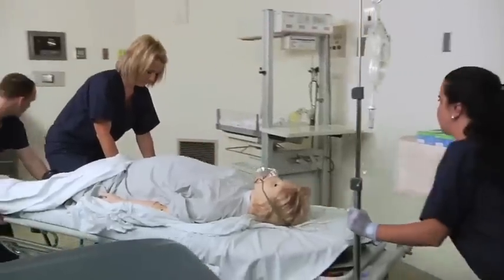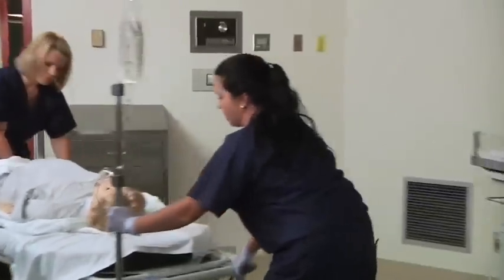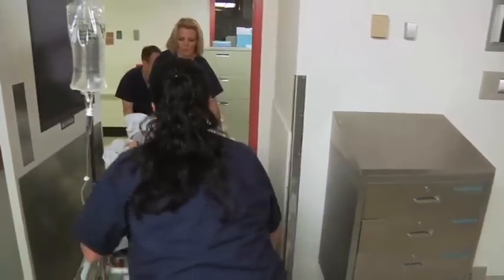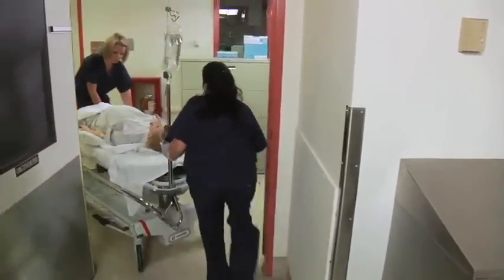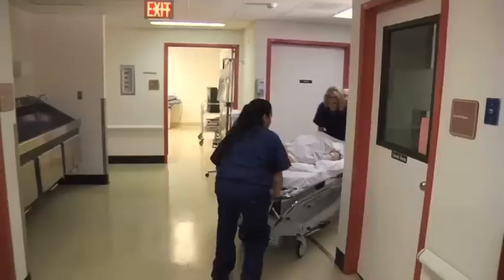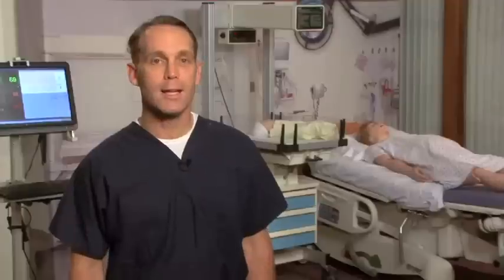The mobility of the MOSE system is also one of its strengths in that it allows you to train where emergencies actually happen. Because it's impossible in a simulation center to recreate all of the variables — everything from the room to where the telephone is to where medications are obtained — you just can't do that in a simulation center.